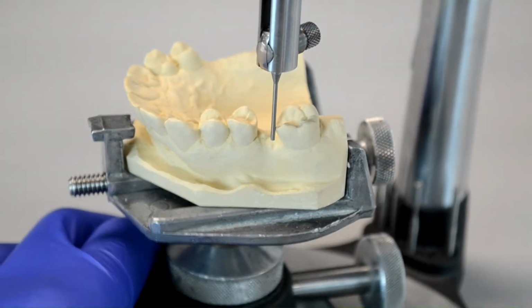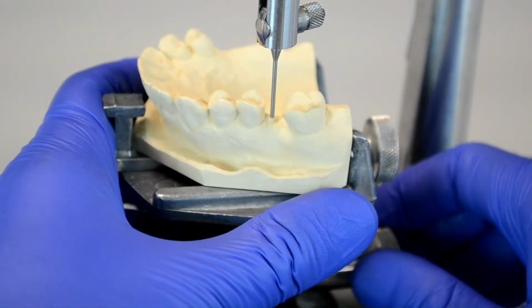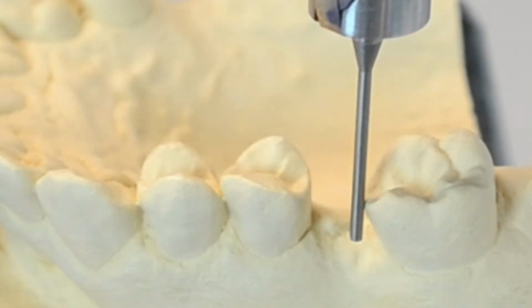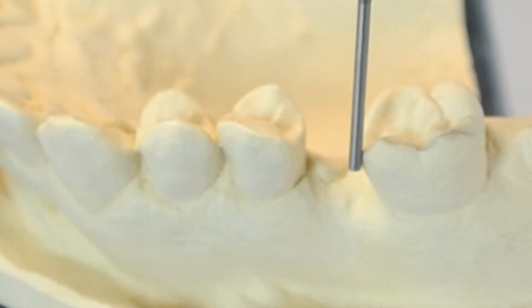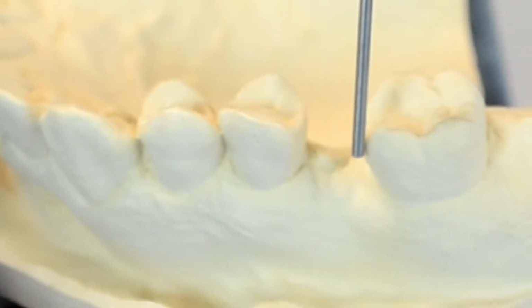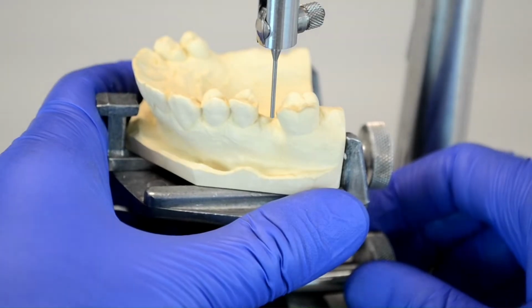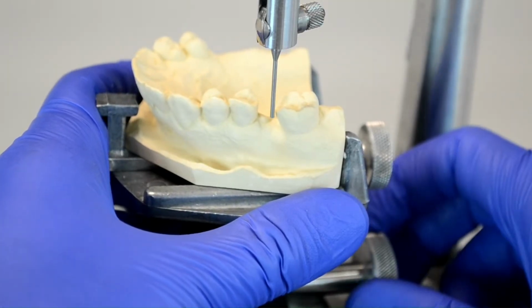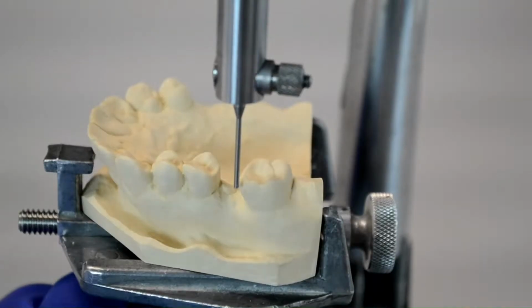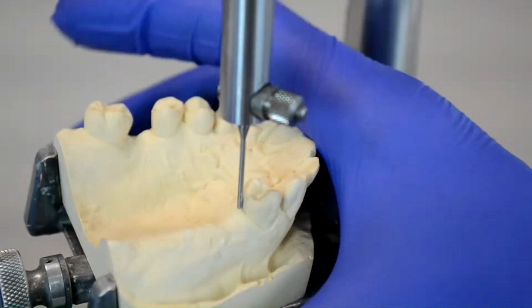As we get the analyzing rod in contact with a surface to be adjusted, a space might appear gingival to the contact point. This means that the angle of the surface to be adjusted does not match the angle chosen for the path of draw, and this would require some adjustment onto that abutment. To minimize this adjustment, we might need to tilt the table in order to change that path of draw so that that surface would better align with the chosen path of draw and minimize the amount of adjustments needed.